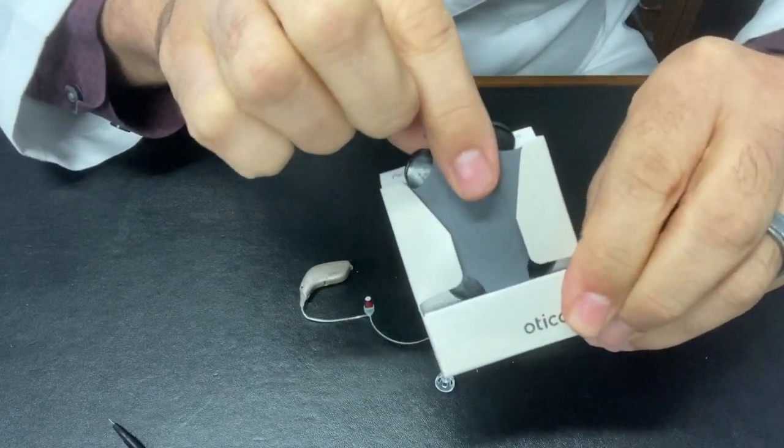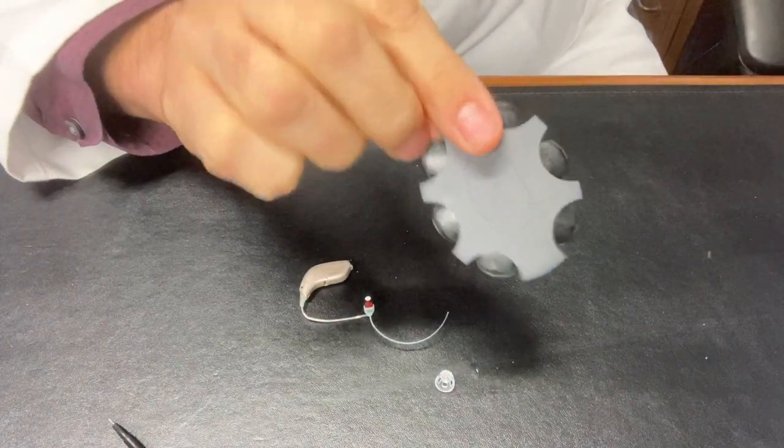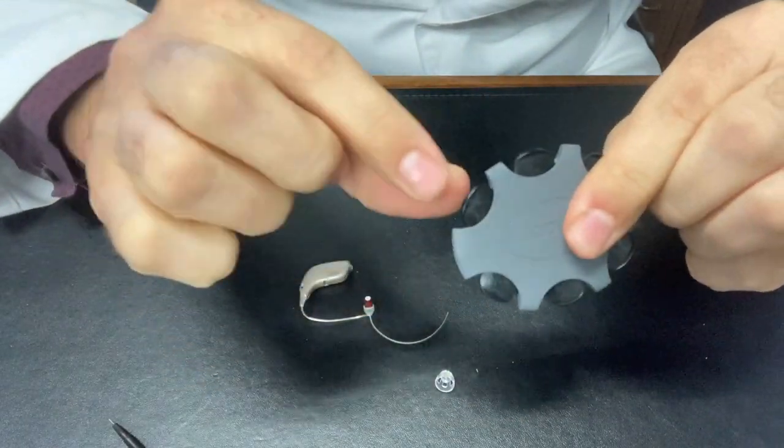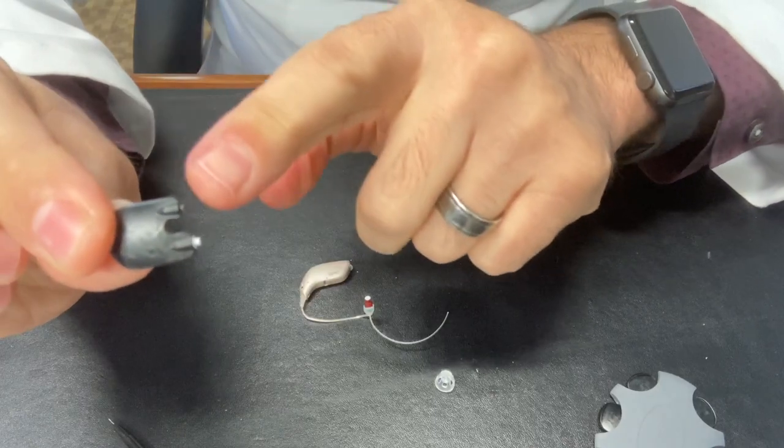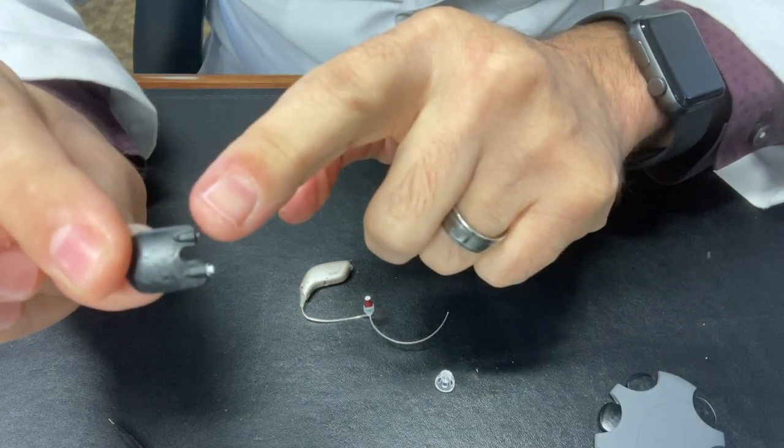There's your little turtle shell here. So you pull out one of these tabs. You can see on this tab that there's two prongs here. One side has a little white piece, and the other side is empty.